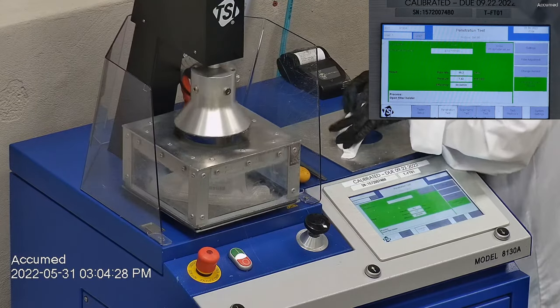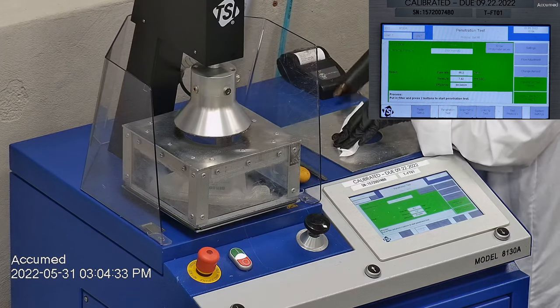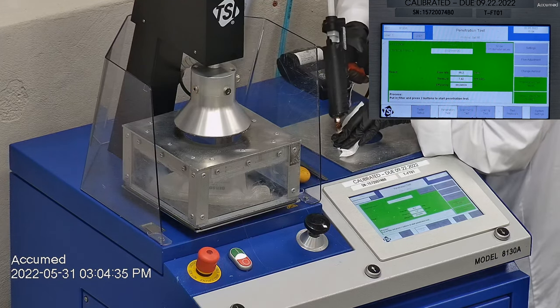The second sample had a filtration percentage of 99.34 and had a pressure drop of 7.4 millimeters of water.